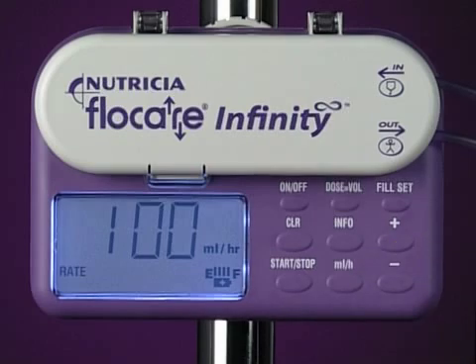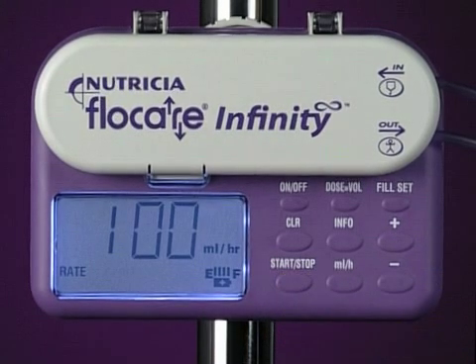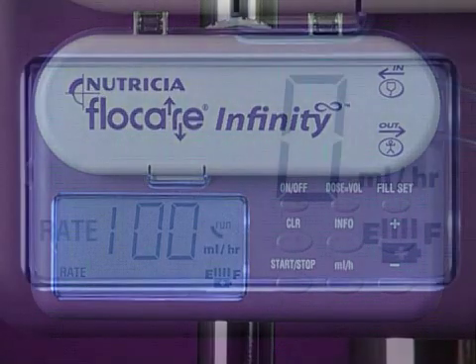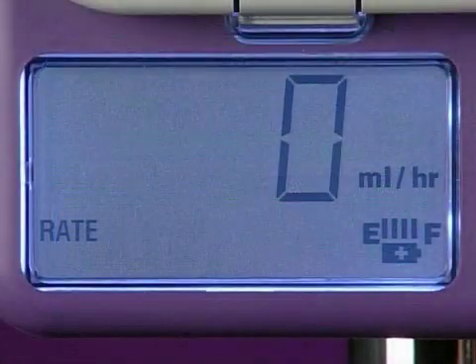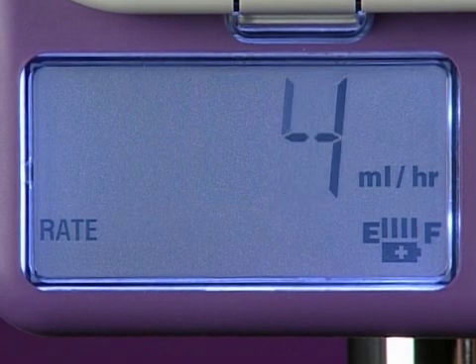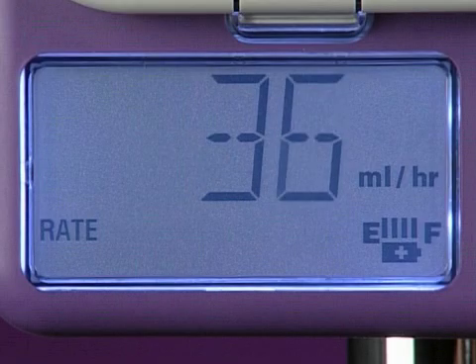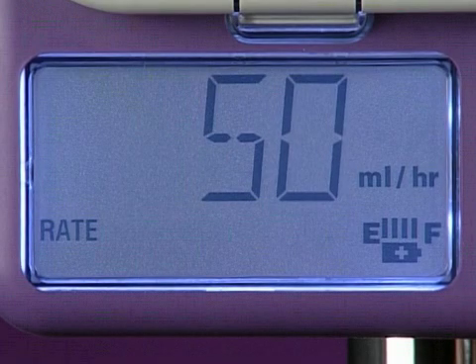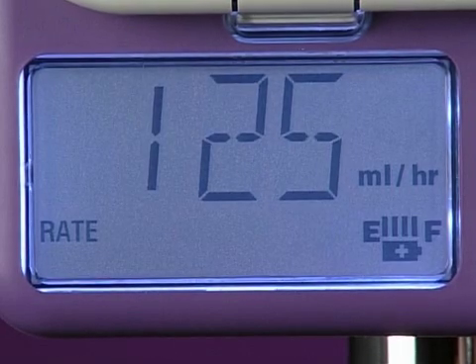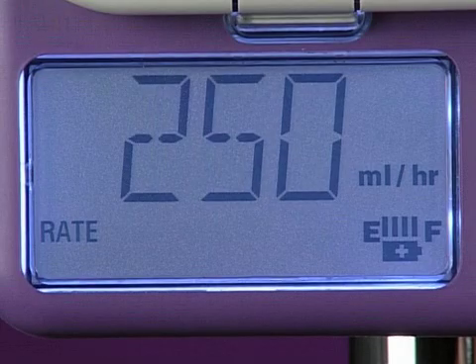Press the start stop key to initiate the program. The flow rate can be set anywhere from 1 to 400 milliliters per hour in 1 milliliter increments. A feature of the pump is that it will briefly pause at common flow rates such as 50, 125, and 250 milliliters per hour.